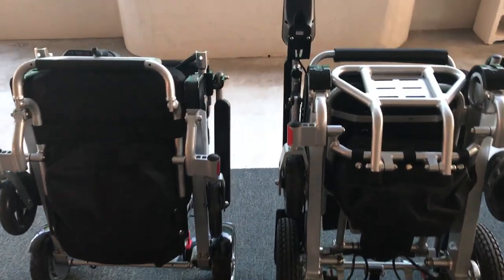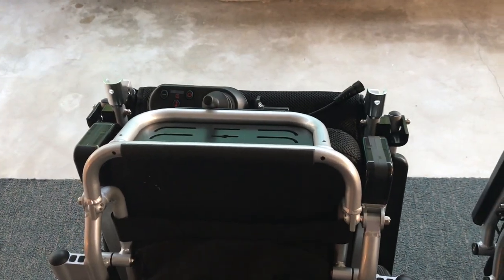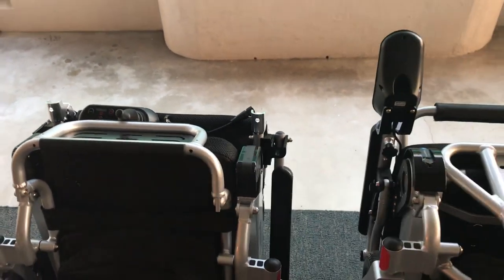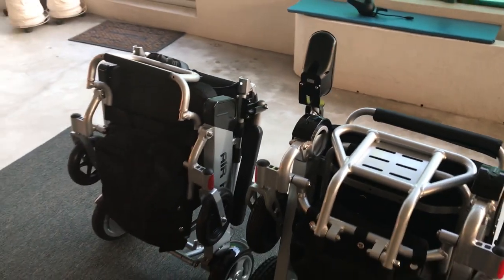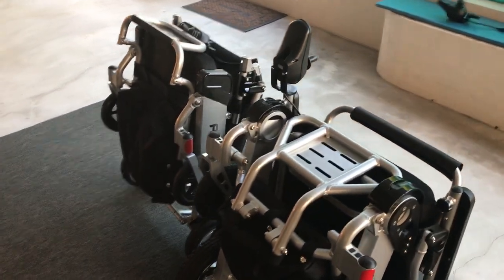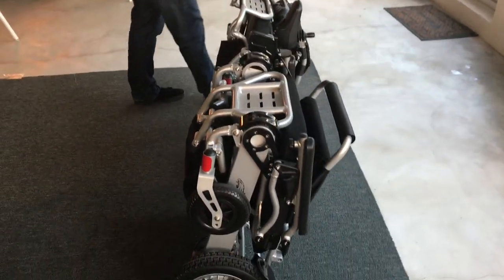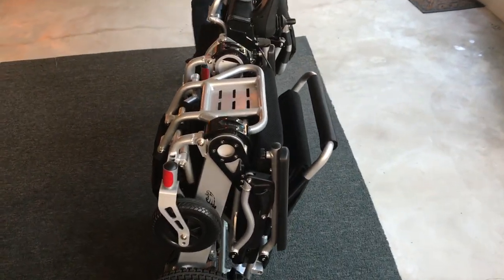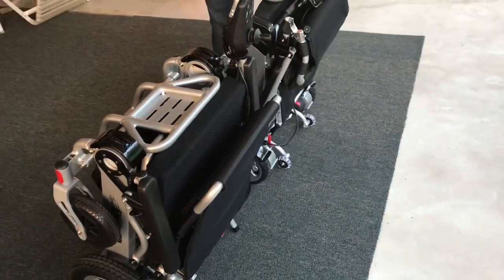Hello and welcome to Quicken Mobile's review. On the right side you have the Eagle, on the left side you were just looking at the Air Hawk — two power folding wheelchairs. Eagle's weight with batteries is 58 pounds, without batteries approximately 50. Air Hawk's weight with batteries is 51 pounds, without batteries approximately 40.